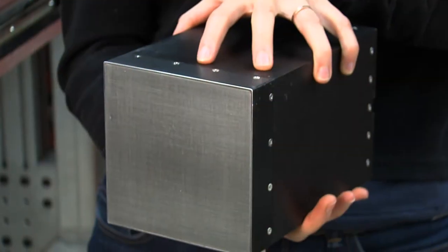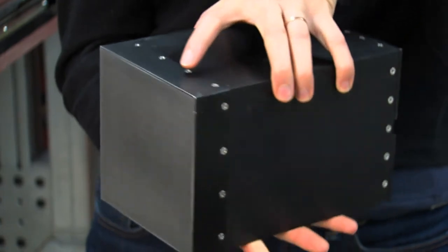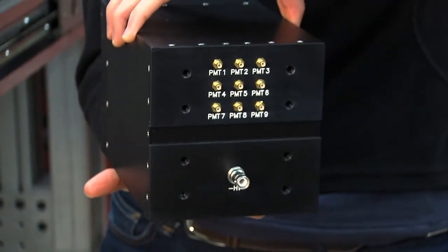We are working with monolithic material for our modular gamma cameras, which get used in our large stationary fast-paced systems.